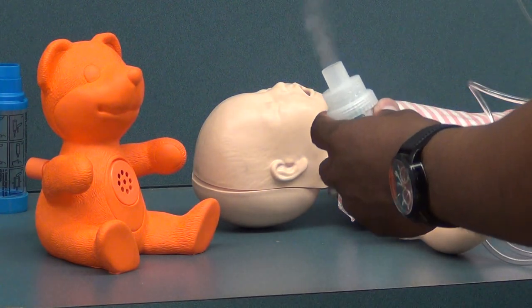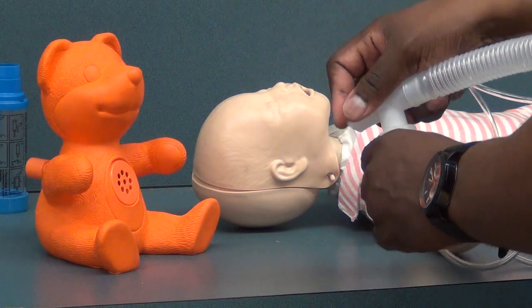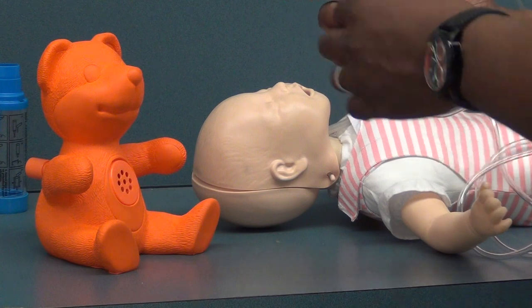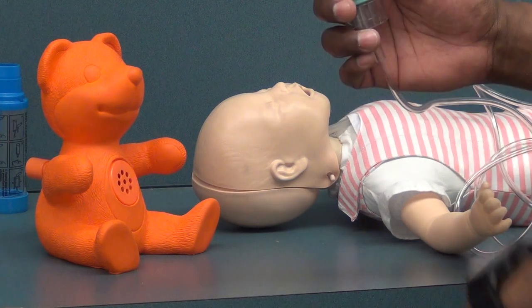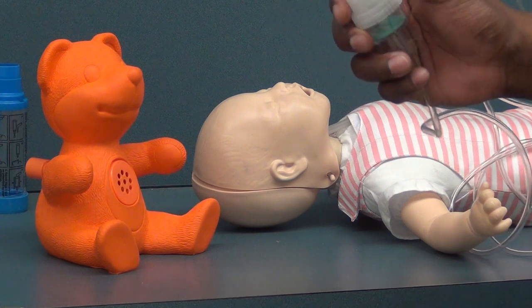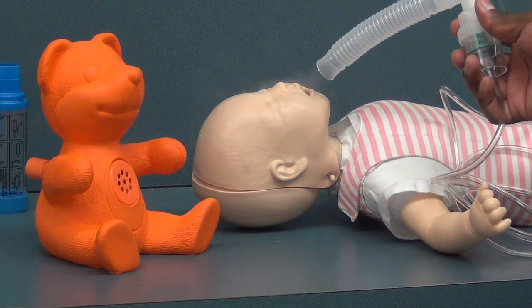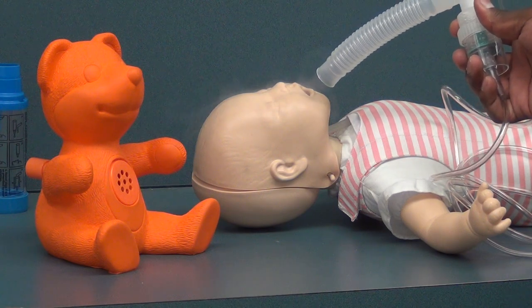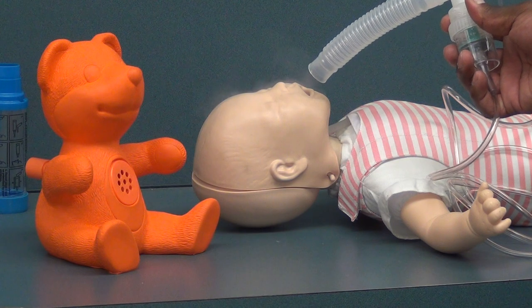Demonstrating how we would use the blow-by method with the T-piece: you place it together and occlude the end where the mouthpiece would go. From that standpoint, we can use our T-piece and just hold it in the general area of the mouth and nose so that we can provide the medicines through the blow-by method.